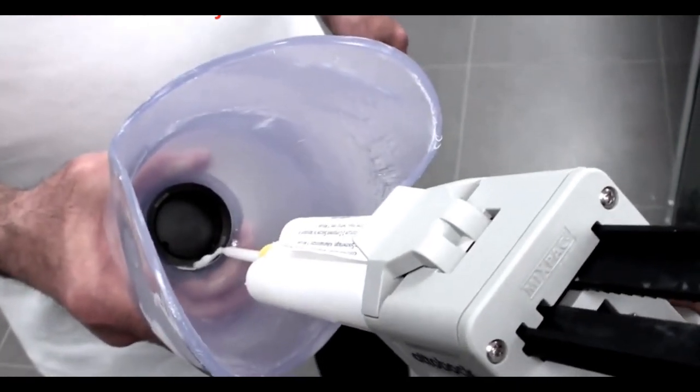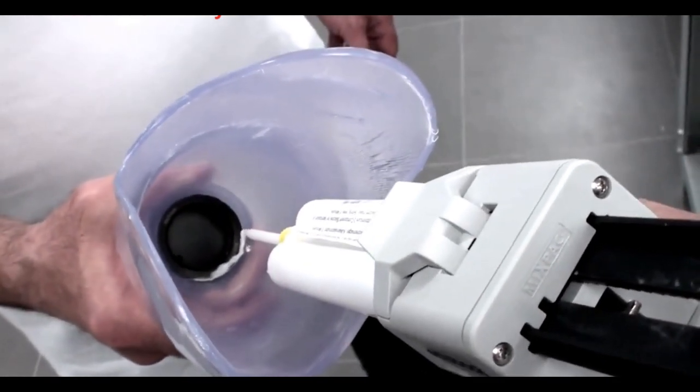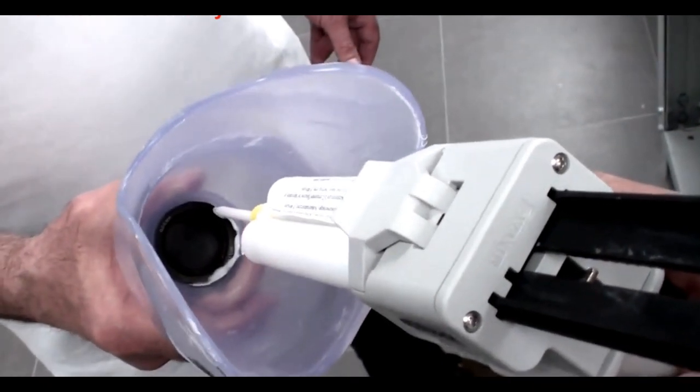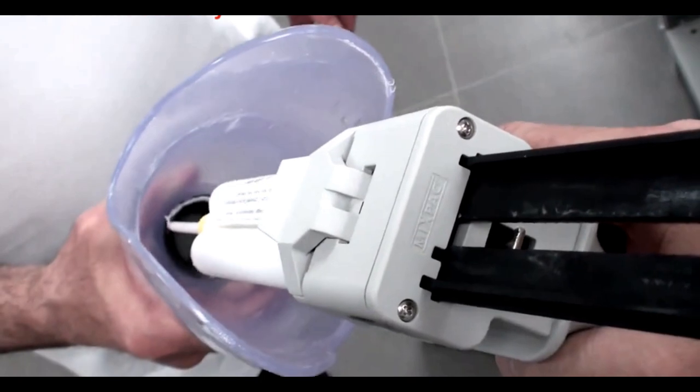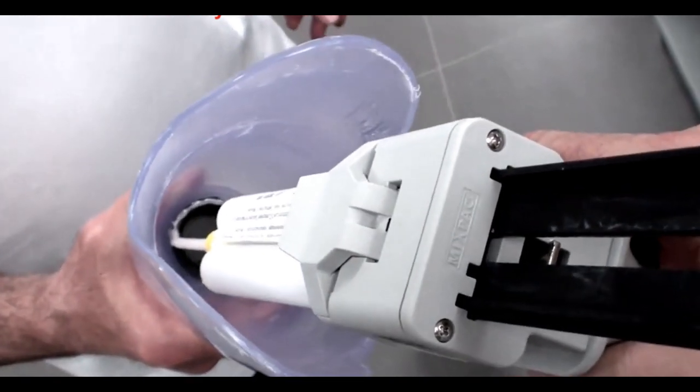In the event that you don't get a complete and perfect seal when you've thermoformed your thermoplastic, you can place a bead of betasil around the inside, around the DVS pump as shown.